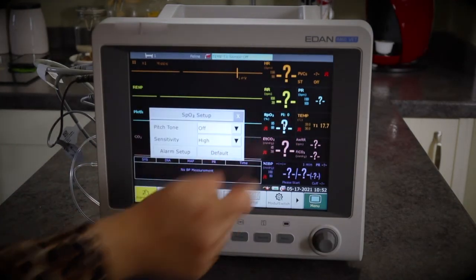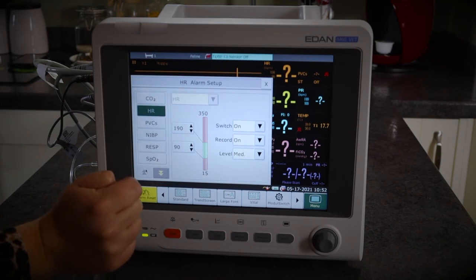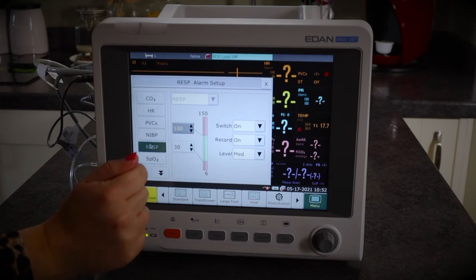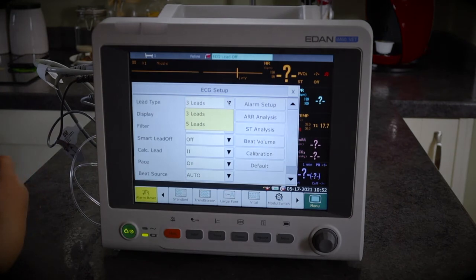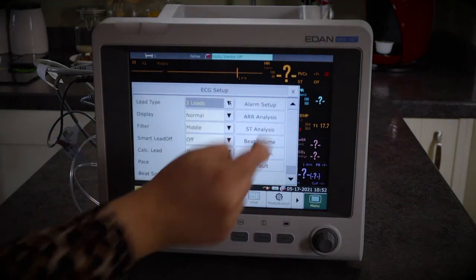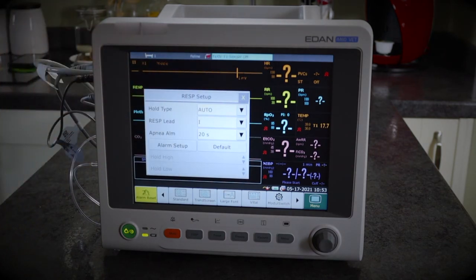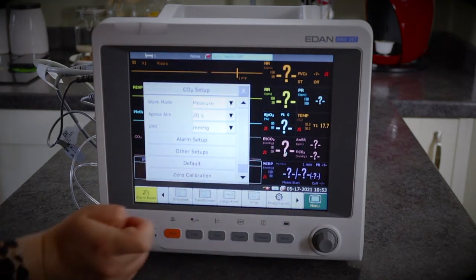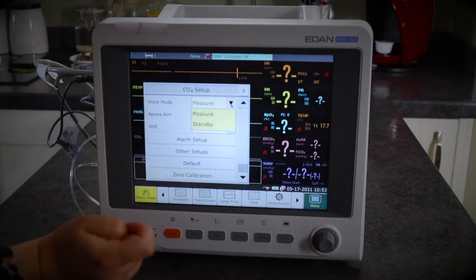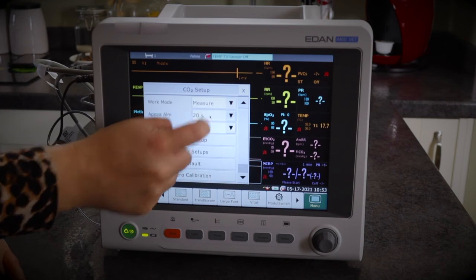You can set up alarms by going into each parameter individually, but you can also use the drop-down menu on the left-hand side of the heart rate screen to change parameters for blood pressure, respiration, SpO2, and others without clicking back in every time. On the heart rate screen you can also choose whether to use three or five lead ECG. For an accurate respiration rate, you must have the ECG connected — a three lead ECG works, but it must be connected. Also ensure that the capnography work mode is set to measure, not standby, as machines can sometimes arrive in standby.